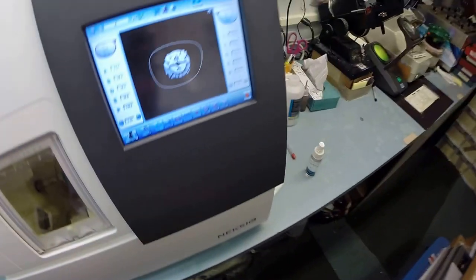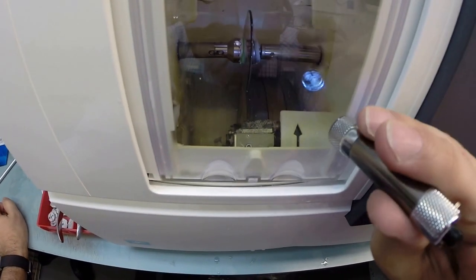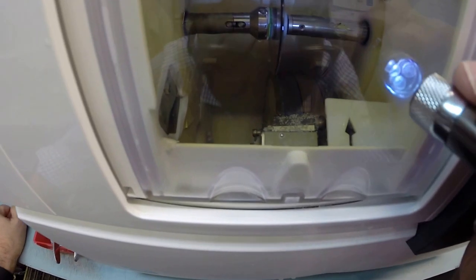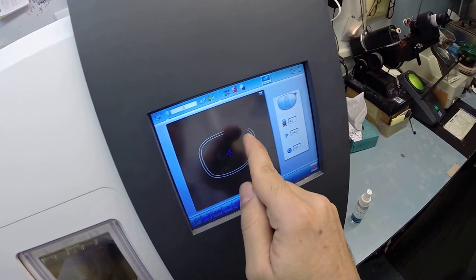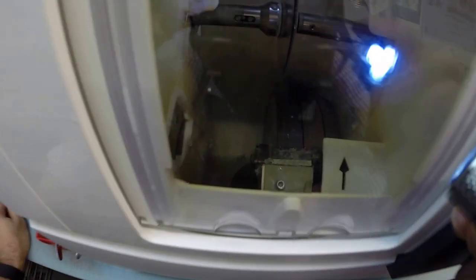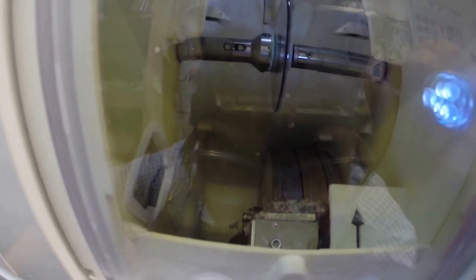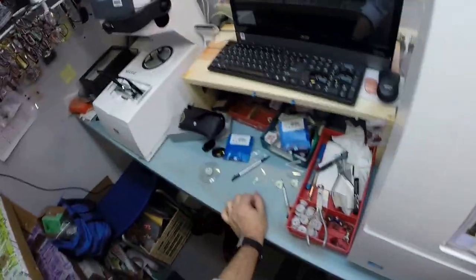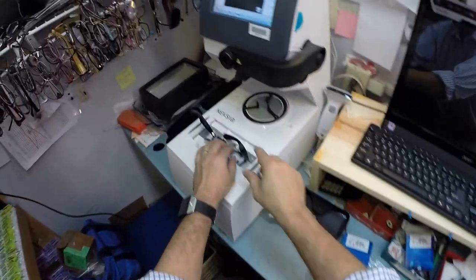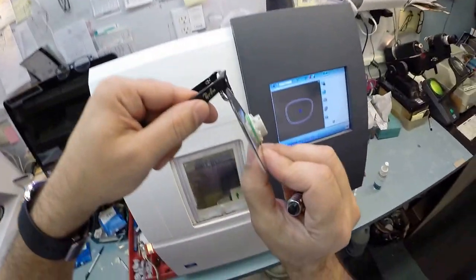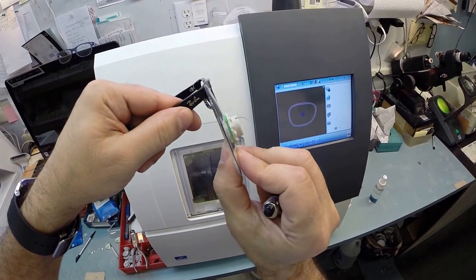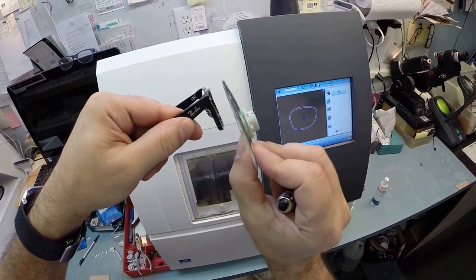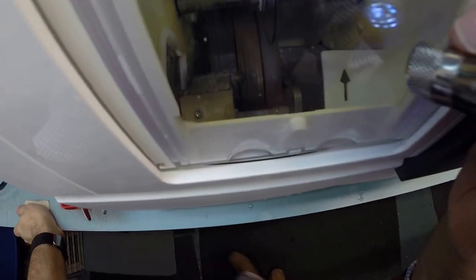The green button which is start in every language. That clamp shuts. The lens is now going to be traced by two white styluses to make sure the lens is large enough to fit into the frame and it is. It's going all the way around. Of course it measures twice, measuring the thickness of the lens at every point to know exactly where to place the bevel on the lens so it fits best inside the frame.